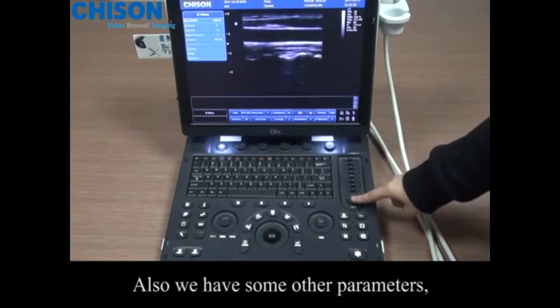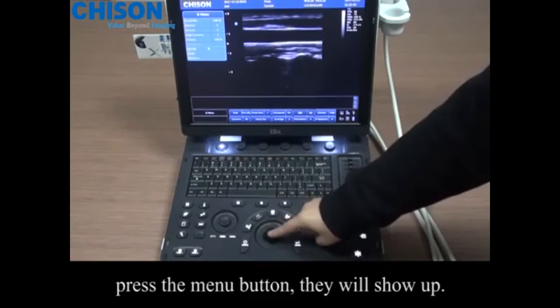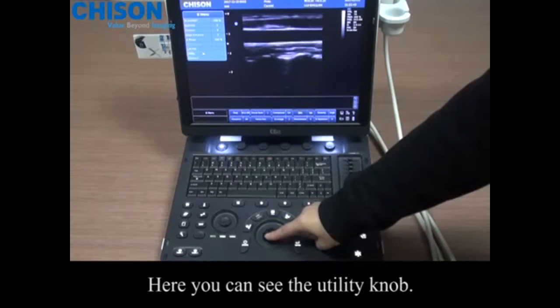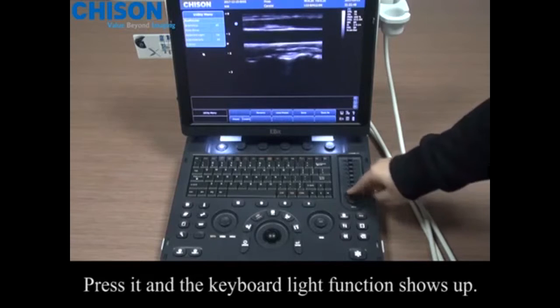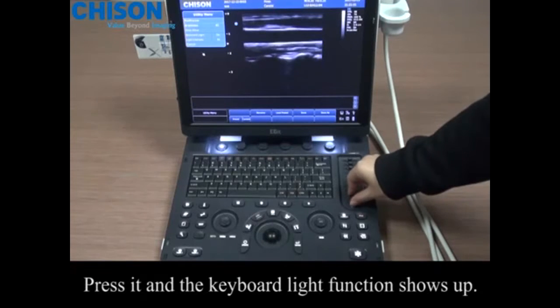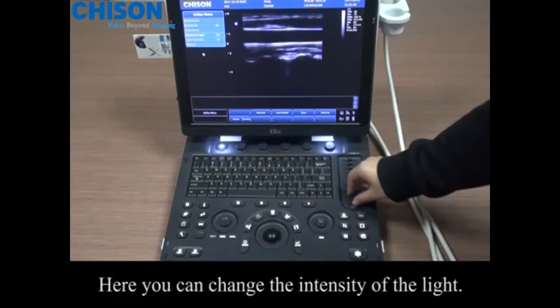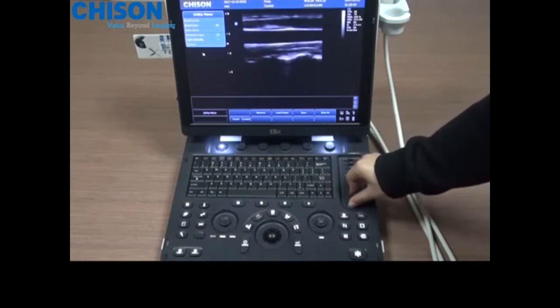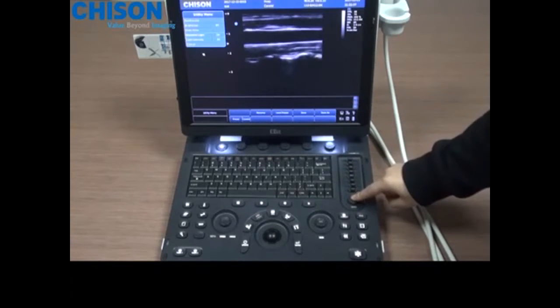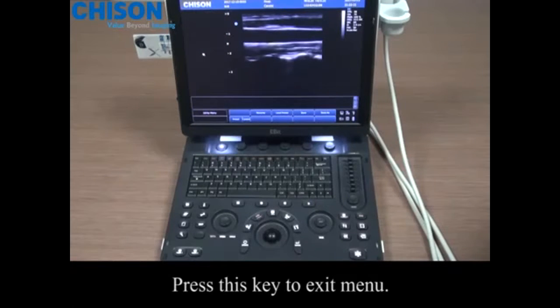Also, we have some other parameters. Press the menu button, they will show up. Here you can see the utility knob. Press it and the keyboard light function shows up. Here you can change the intensity of the light. Press this key to exit menu.